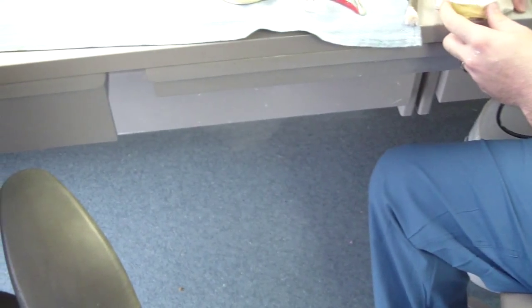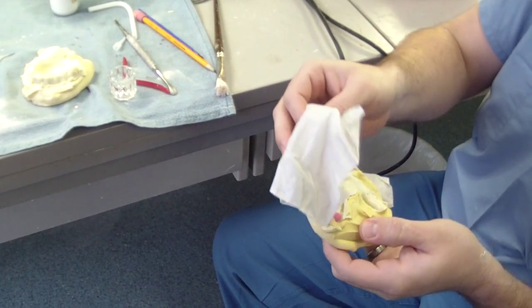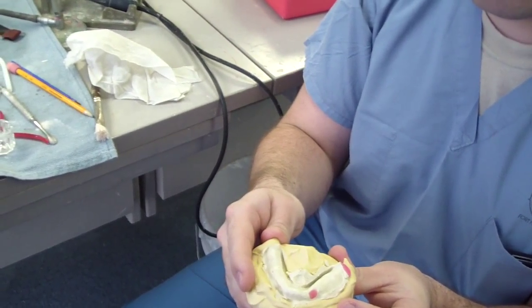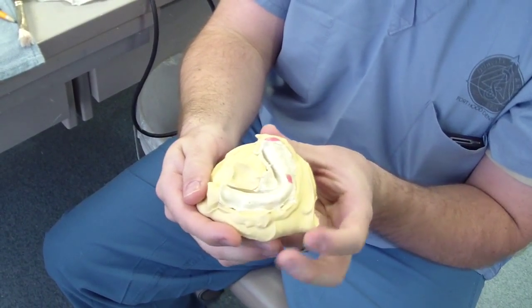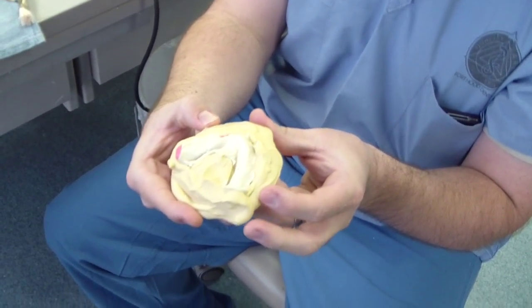Same thing on the lower. So you took an impression of the inside of the denture — correct. That's the inside of the mandibular denture, the intaglio surface. Made an impression of it, and then set that on a type 3 stone.